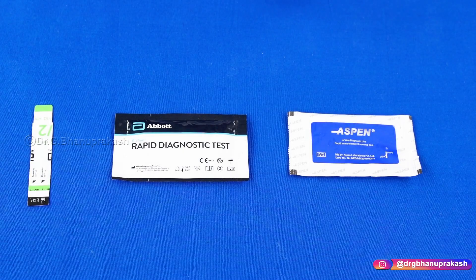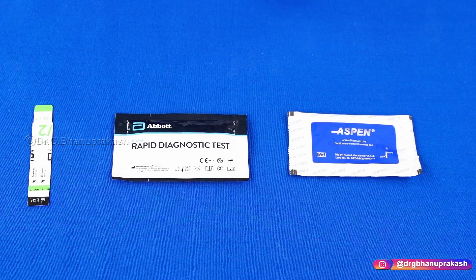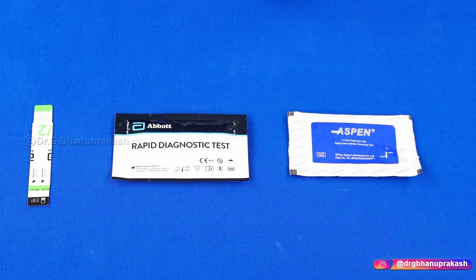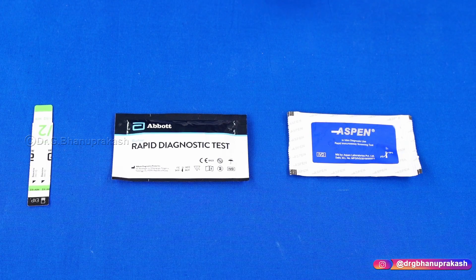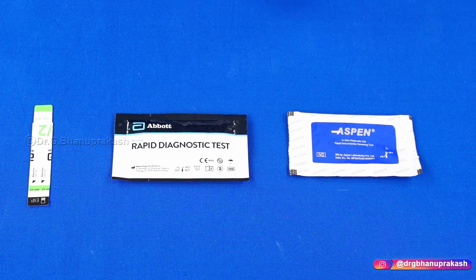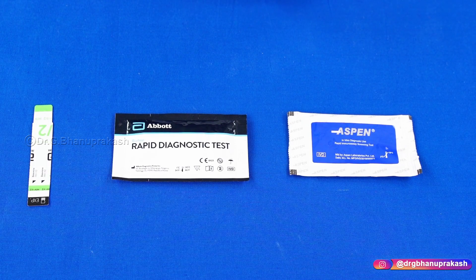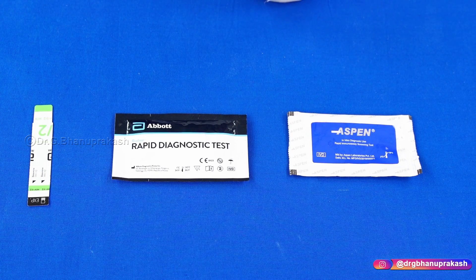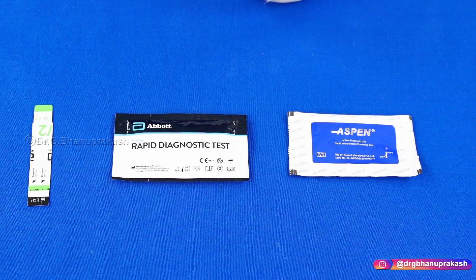Hello guys. Whenever you come across a patient in your casualty or emergency department, before admitting the patient or before planning the surgery date if needed, you basically do three viral marker tests before you come in contact with the patient's blood. The three viral markers are HIV, Hepatitis B, and Hepatitis C.